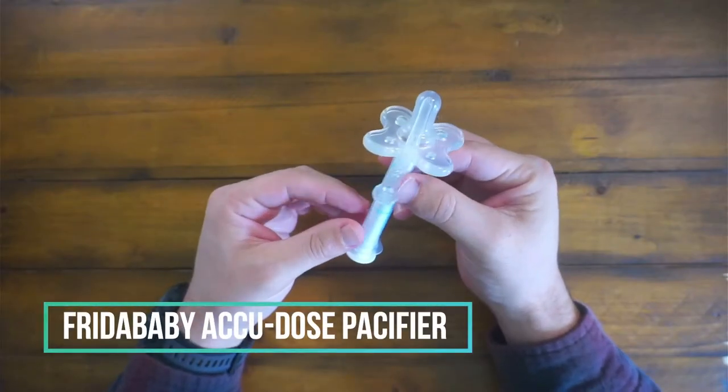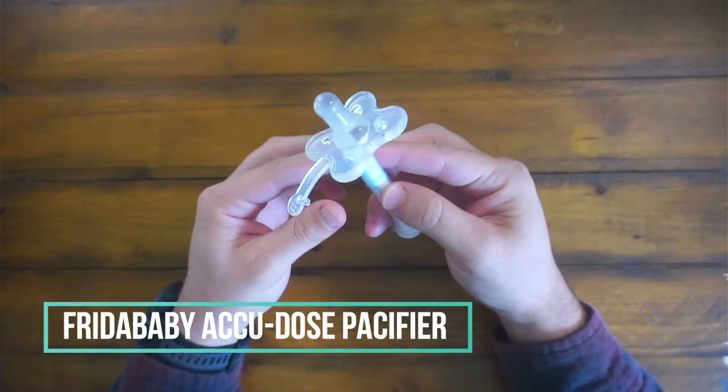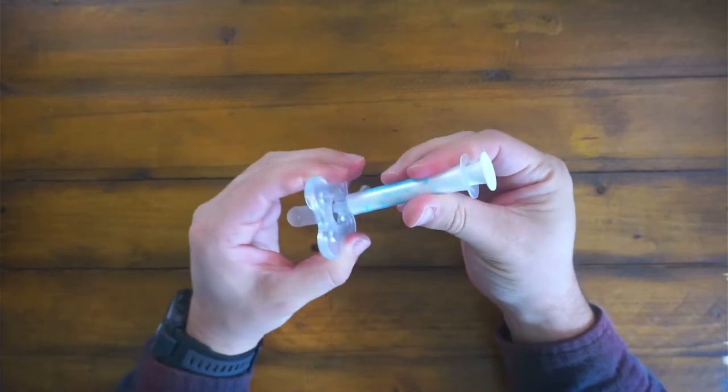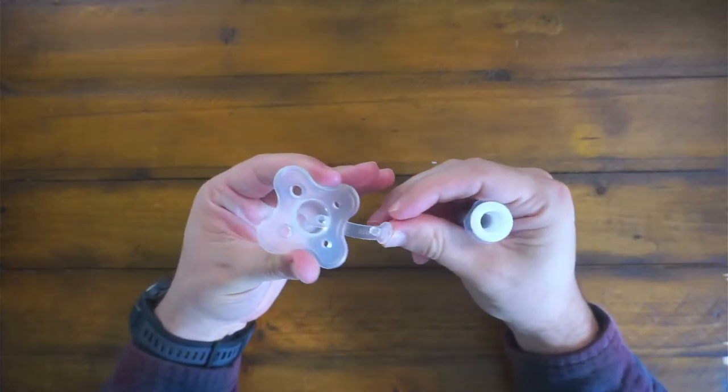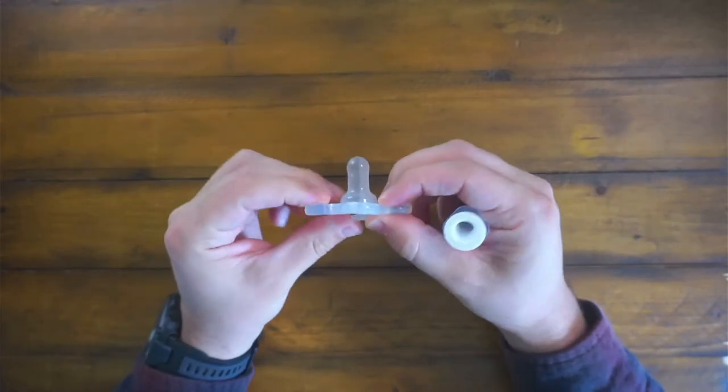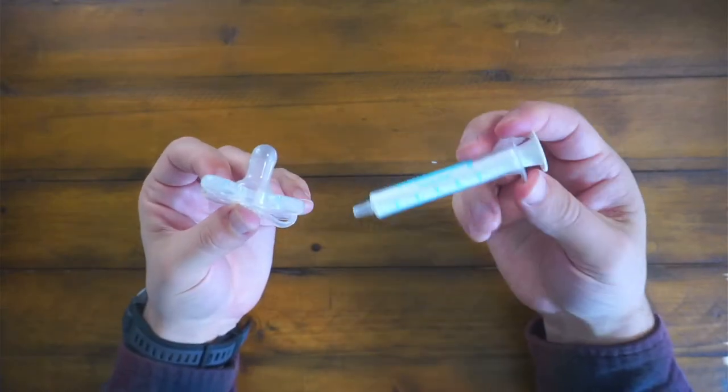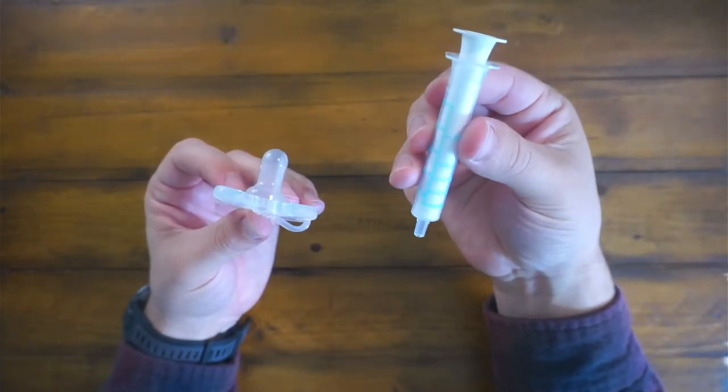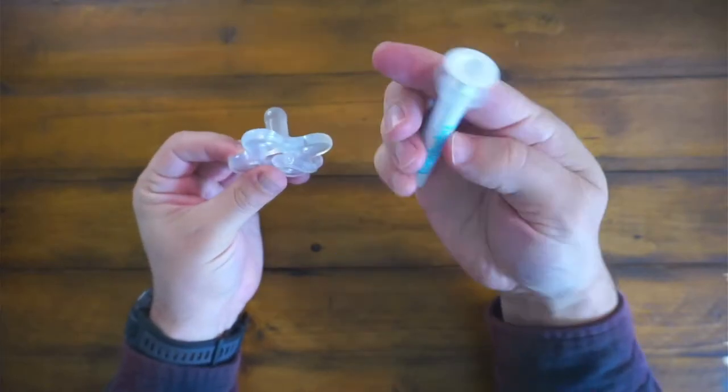Hey guys, CJ here. Today we have the Frida Baby Medi Frida. This thing is a pretty neat little invention they got here. It's basically an easy way to accurately give out medicine through a pacifier, which is pretty nice.